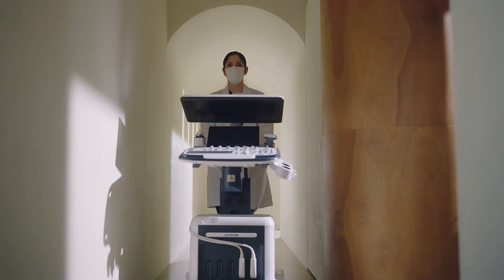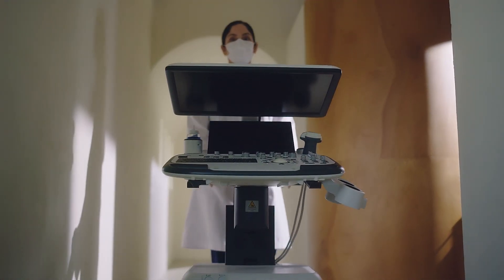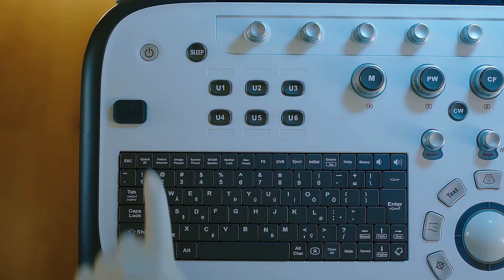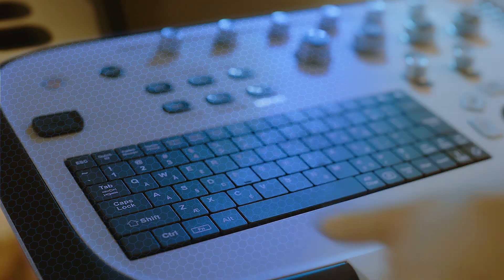With the COVID-19 pandemic, prevention of outbreaks in hospitals has become a top priority in order to protect patients and healthcare providers from viruses.